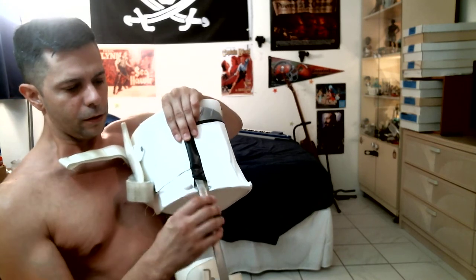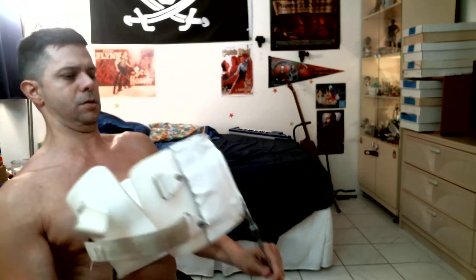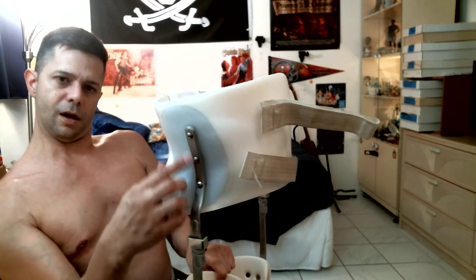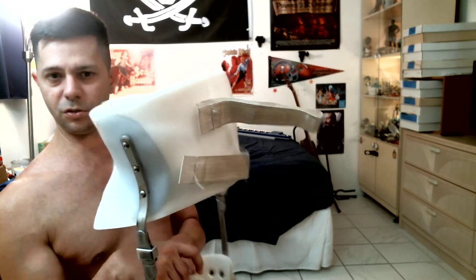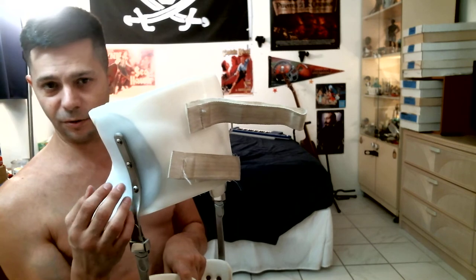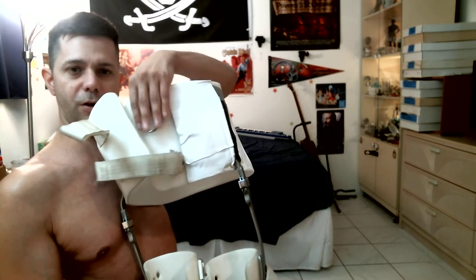What happened was — you can see on this side there's a little metal plate in there that the leg part screws into, or is bolted or fastened to. On the other side there was no metal plate, so it was just fastened to the plastic or plaster, whatever material is used to make this part of the brace.